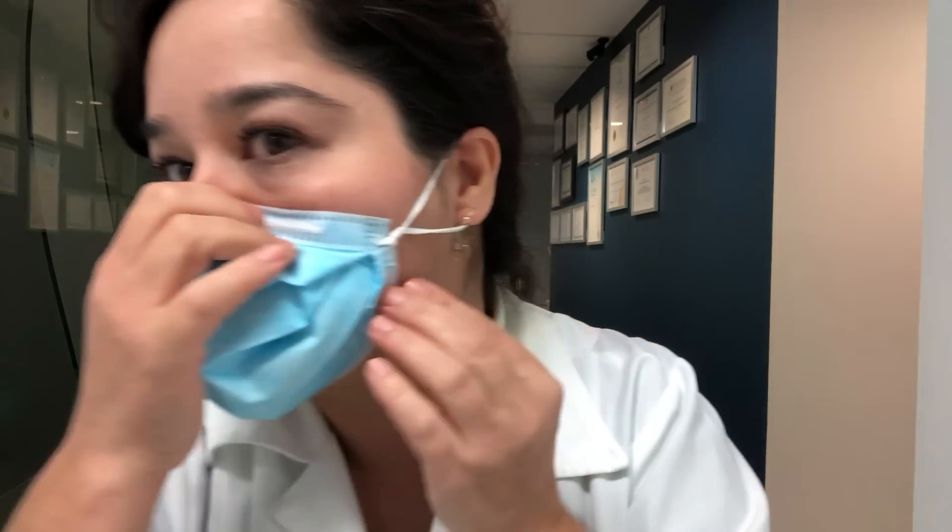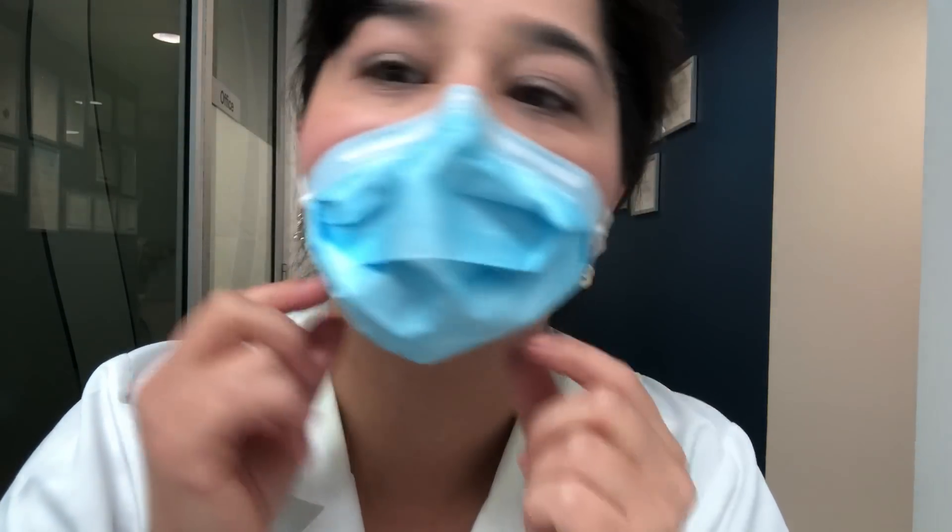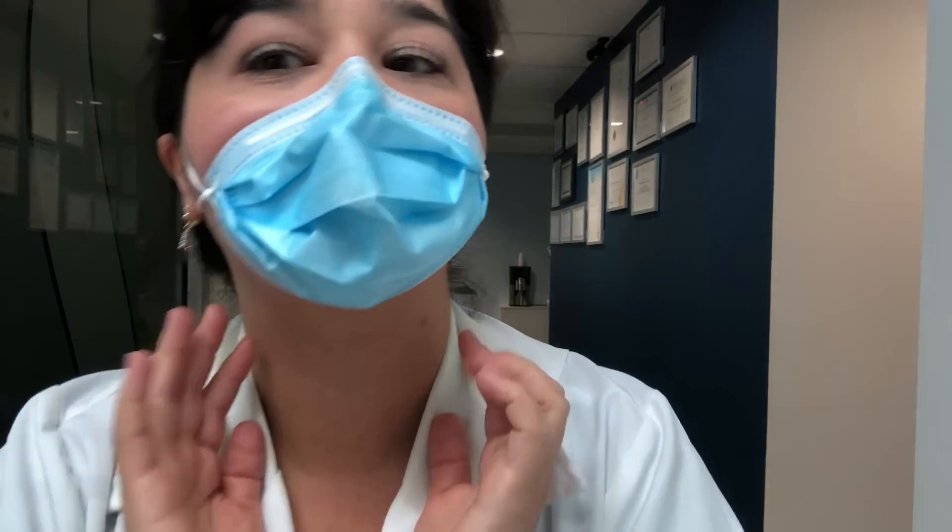And if you have a look, you'll see that you don't have a big gap once you put the mask on — you have achieved a better seal with not much gap. See if I actually blow air on this mask, you can see it inflating and deflating, which means that the seal is a lot better than it was.